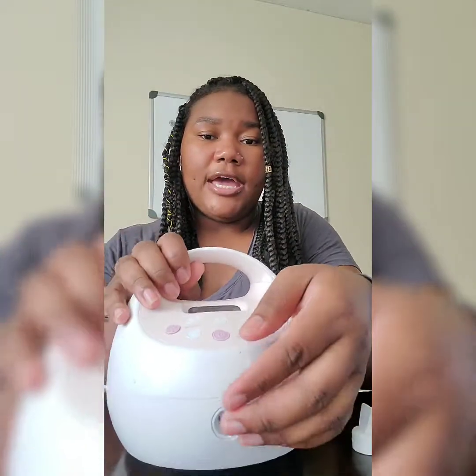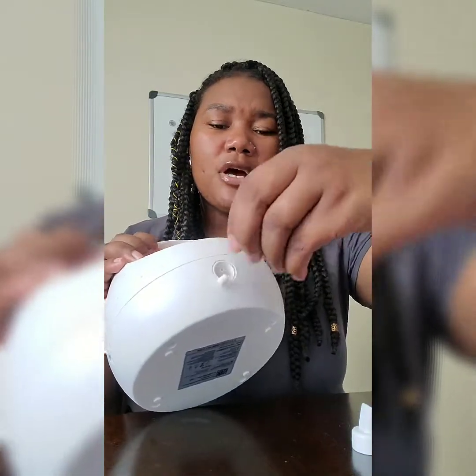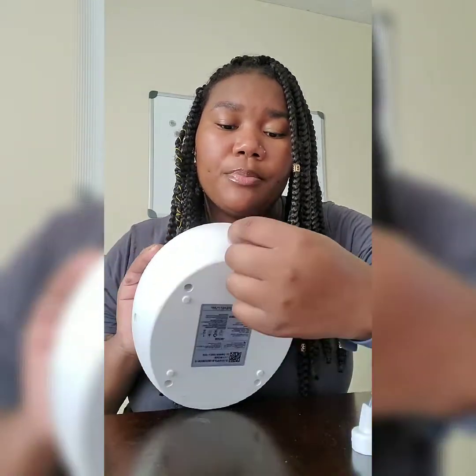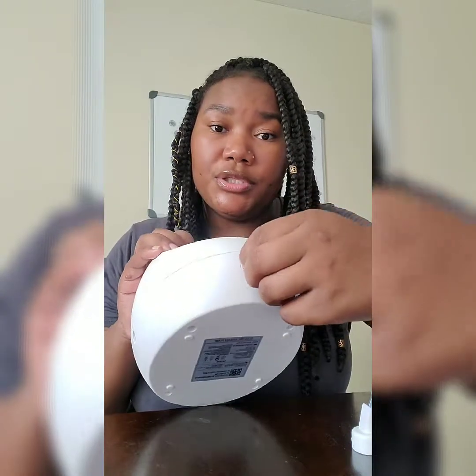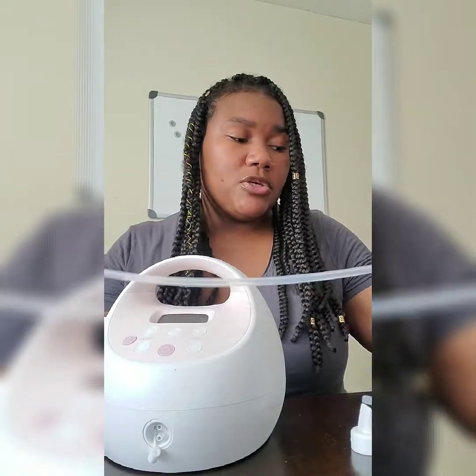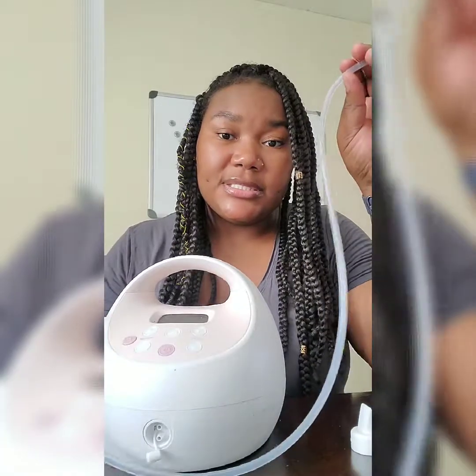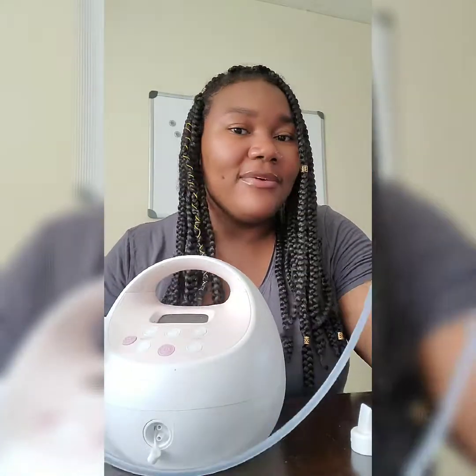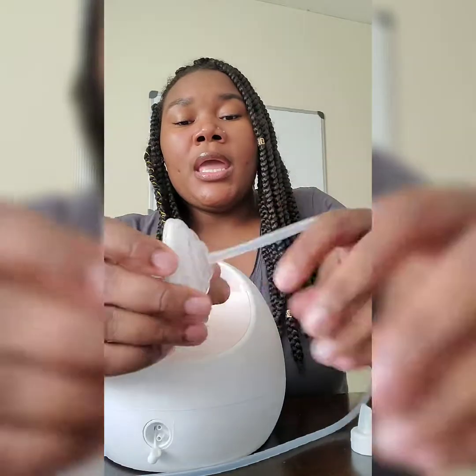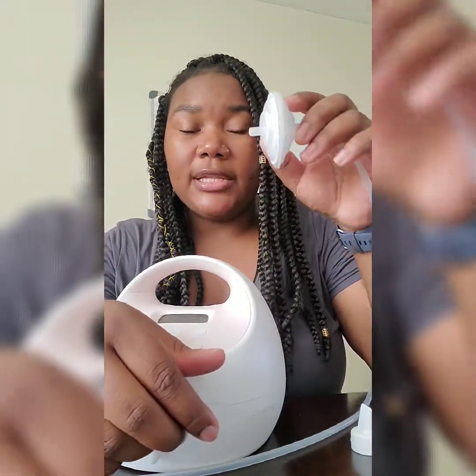The tubing ports are on the front of the pump. They have two of them in case you want to do a dual pumping session, and they have a little stopper you can put on one of the holes if you just want to do a single breast. The tubing is the same I have for the Free Me pump, but I like this system because it doesn't have any backflow, and that's because of this little contraption here — it actually looks like a little breast.